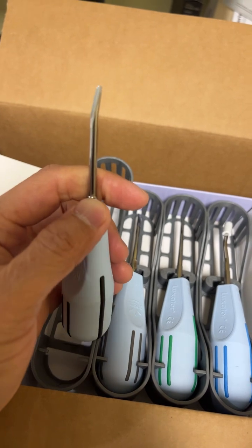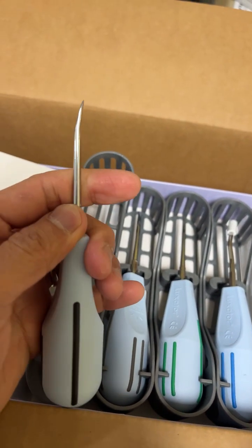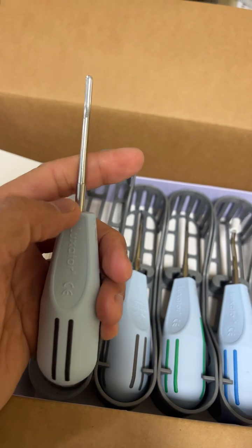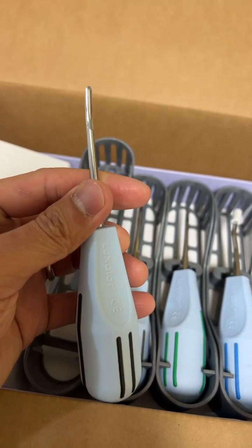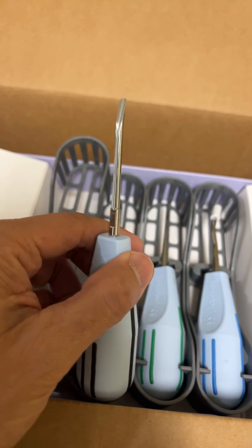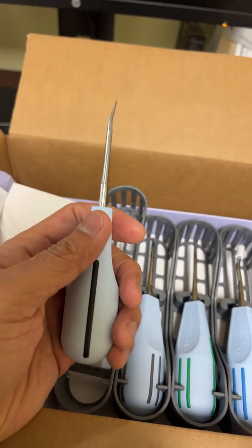I just want to show you how sharp these luxators are — very sharp. It's definitely a very useful tool if you want to take out a tooth, whether it's a molar or an anterior tooth, atraumatically. It's a very nice tool.